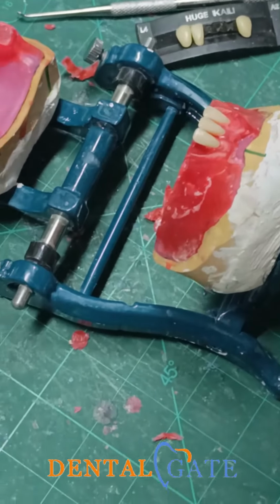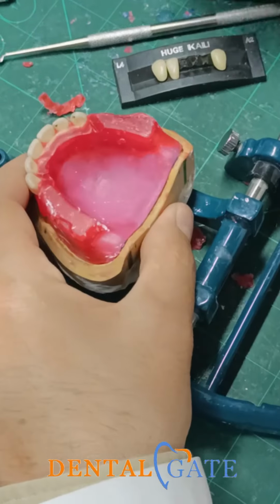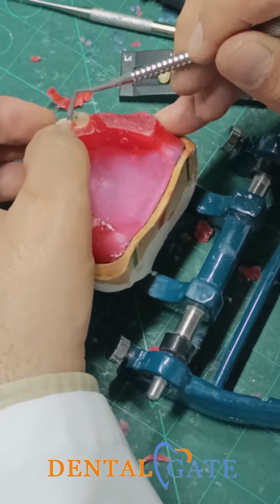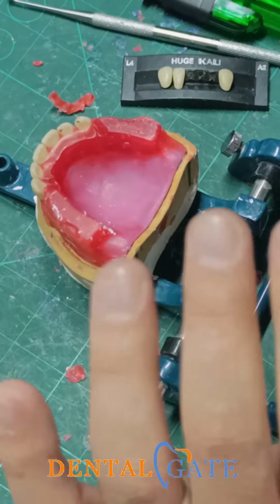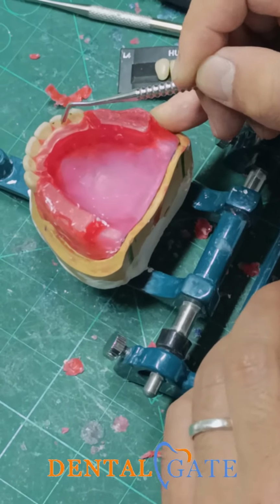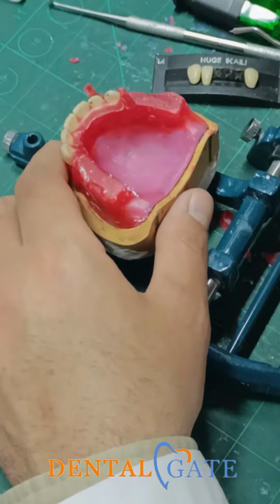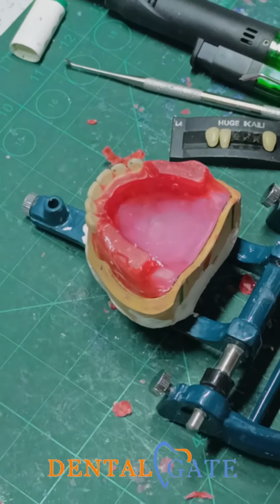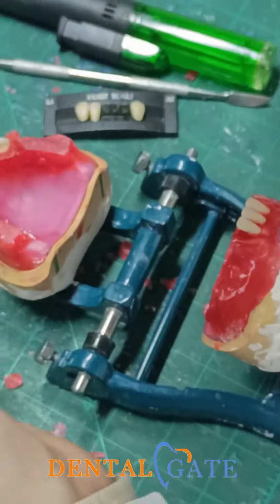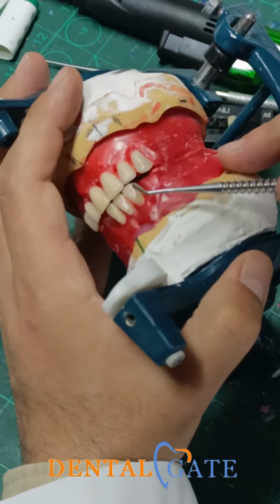The lingual aspect of the central incisor is not the same as the lingual aspect of the lateral. We had a difference here, we have a thickness here. So I need to push my lateral labially to compensate this space, to preserve 1 millimeter. The criterion says the long axis of the tooth should be slightly sloped labially. Why? Because I want to preserve the 1 millimeter. So this is the 1 millimeter, okay?